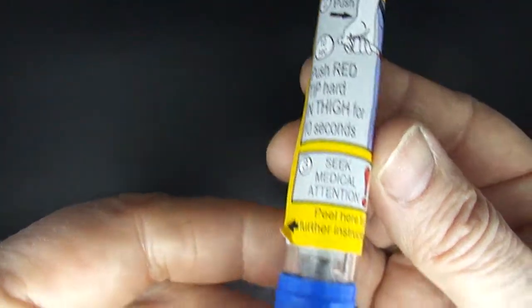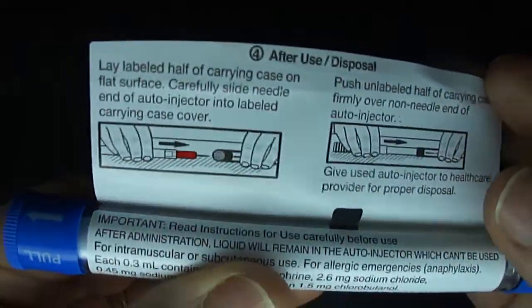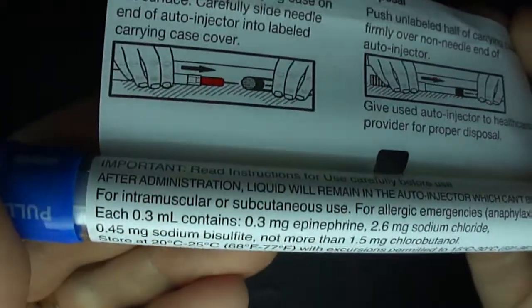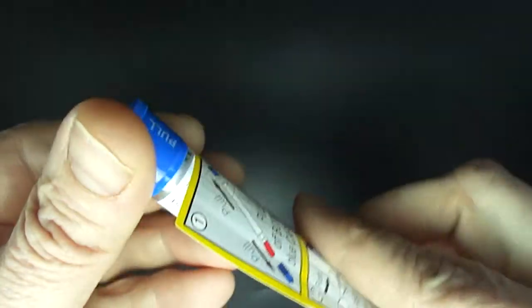There are some instructions for use on the back. And there are some additional instructions if you peel back the label, mostly about what to do after use and some safety information and prescribing information.